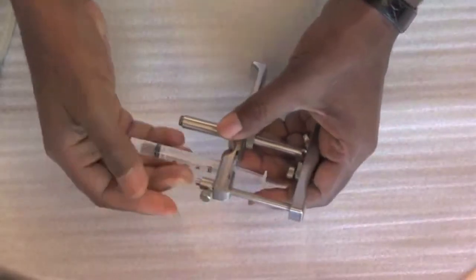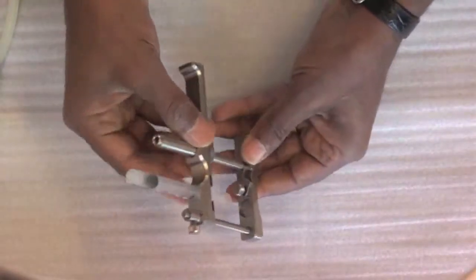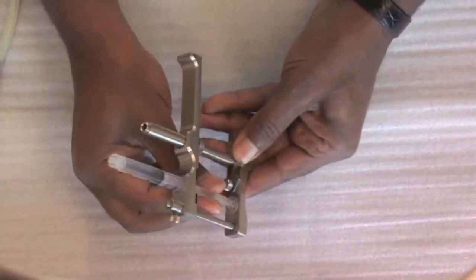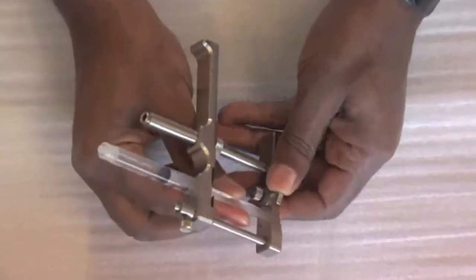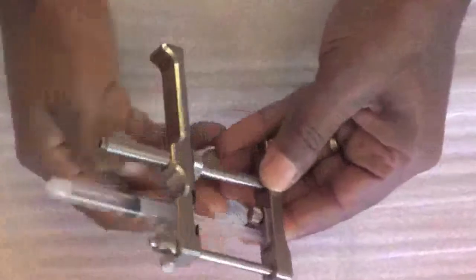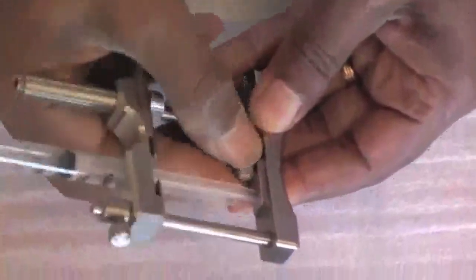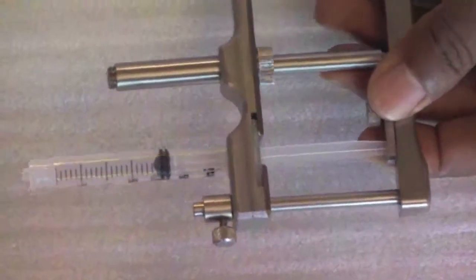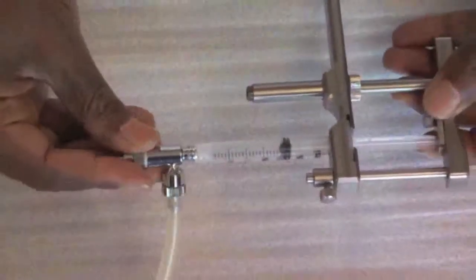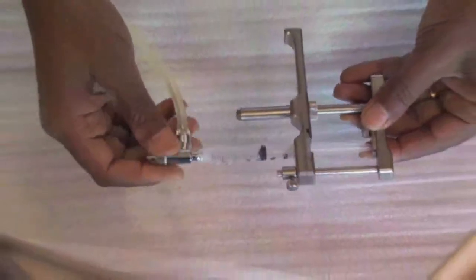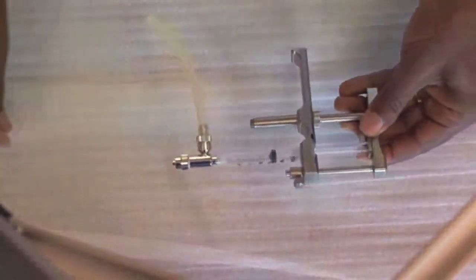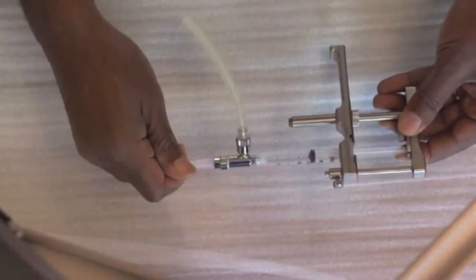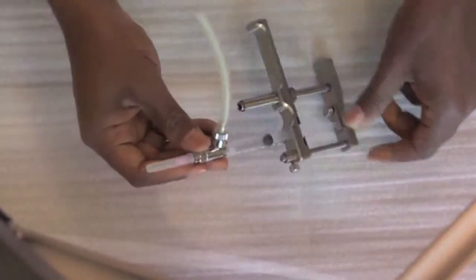Reattach the dose control ring at your desired volume. Then pull the syringe plunger back and lock this in place with the plunger flange lock plate. Next, screw on the dual check valve and attach your desired needle size.